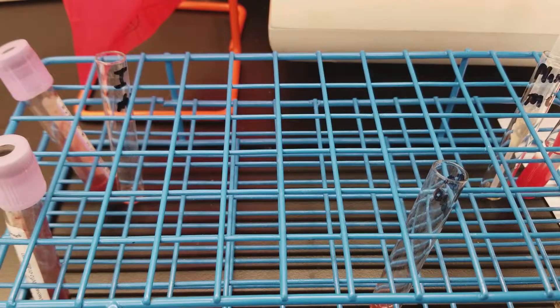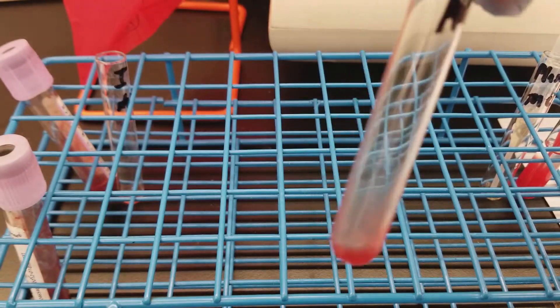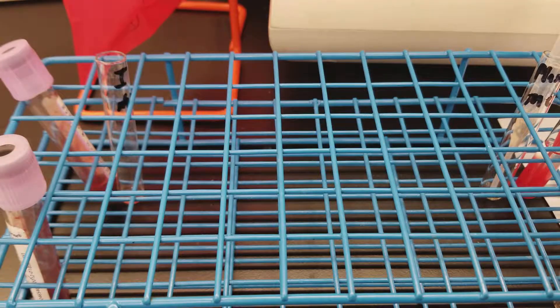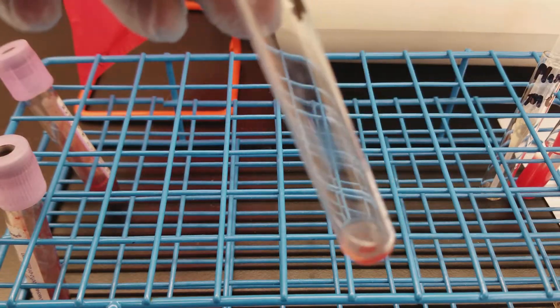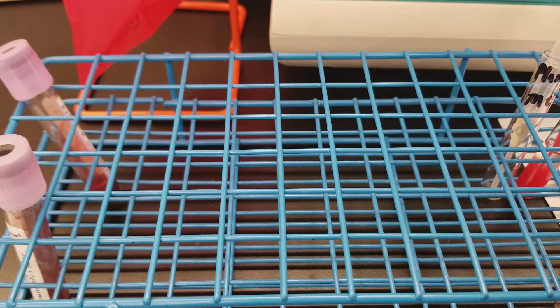Notice that I did not decant or take out any of the AHG reagent — the reagent is still in there. I'm putting the positive tube back into the centrifuge just to balance it, even though I'm not going to read it. So don't get confused on that. We're doing 15 seconds.